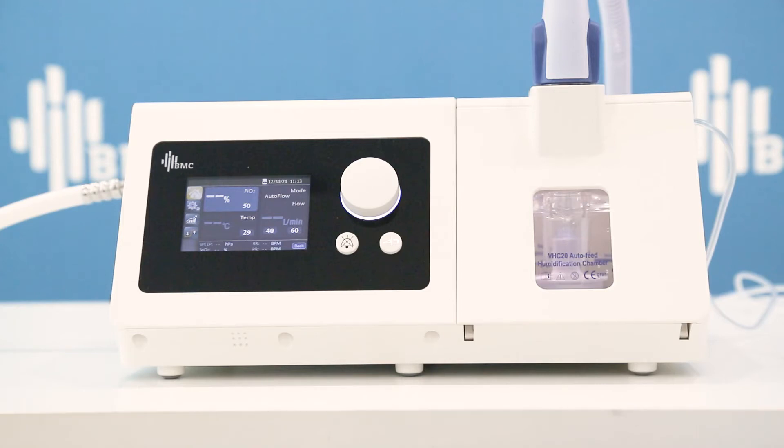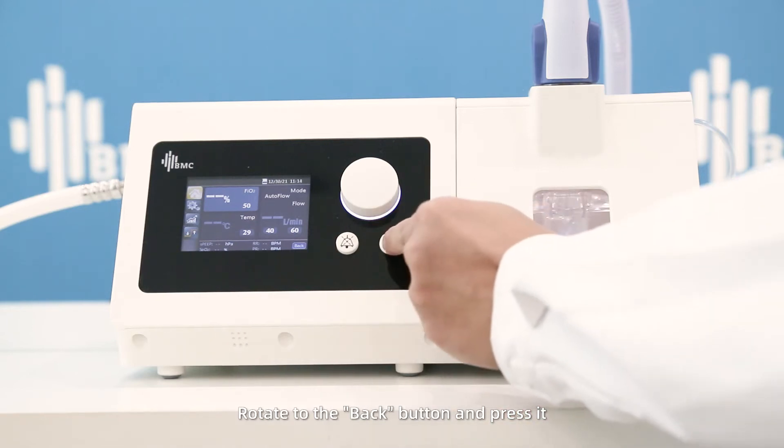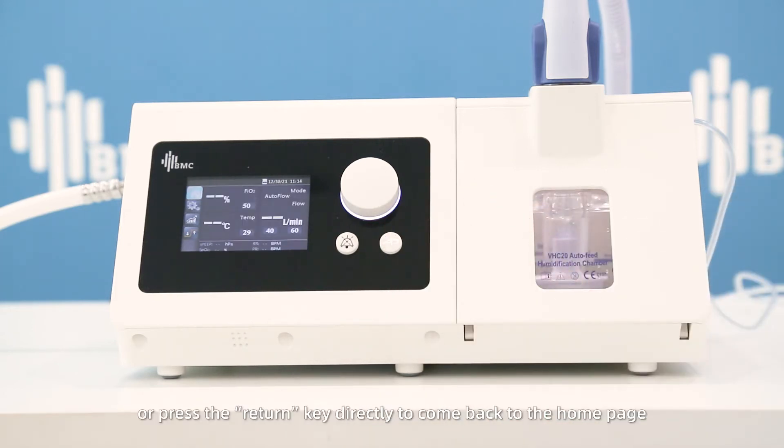Rotate to the back button and press it, or press the return key directly to come back to the home page.